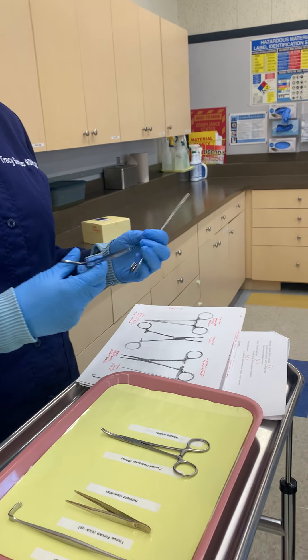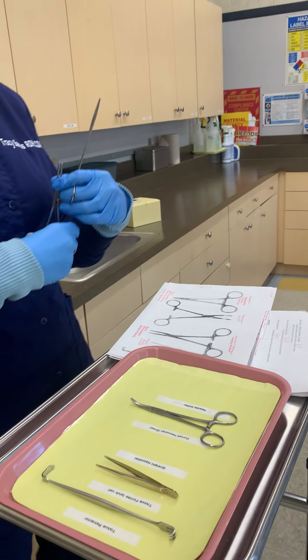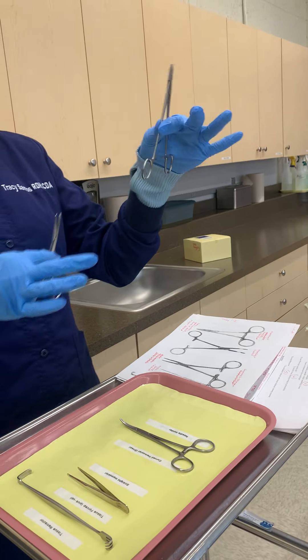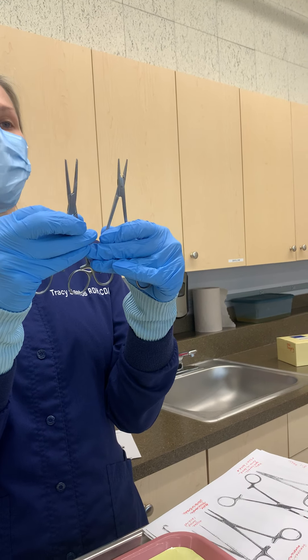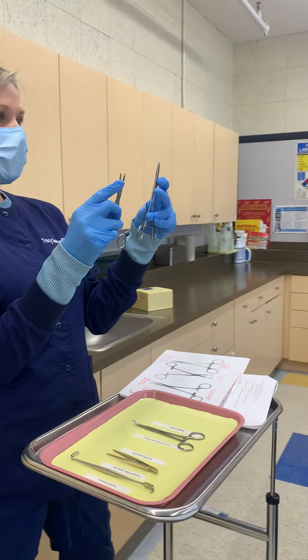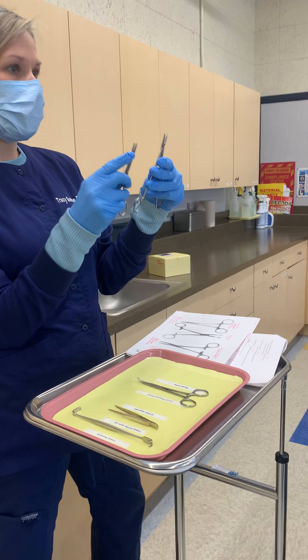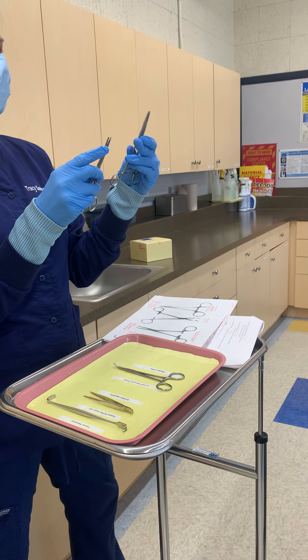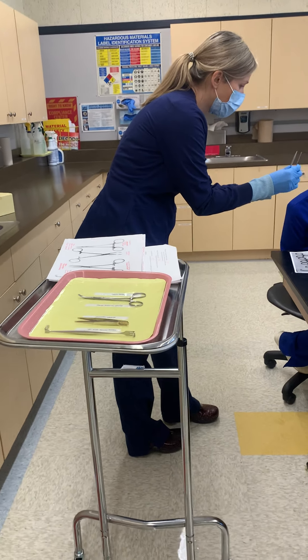Another quick way to differentiate: your straight hemostat has a long beak, and therefore your needle holder has a short one. Holding these two up, you can really see that's a big difference. So to differentiate the needle holder when looking at a tray full of instruments, it's going to have that notch and it's going to have a short beak.